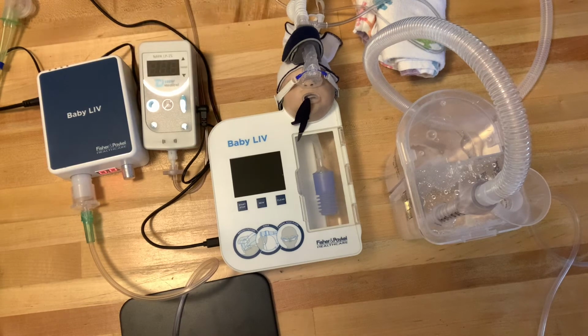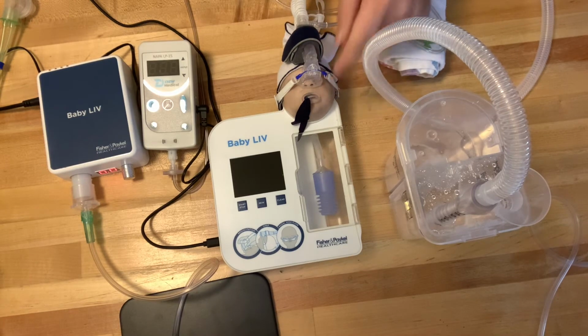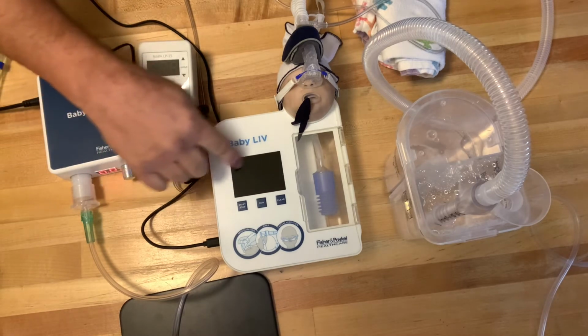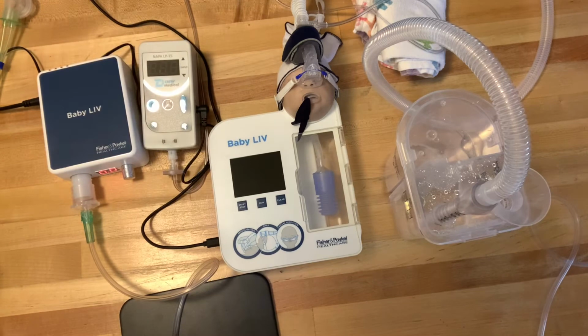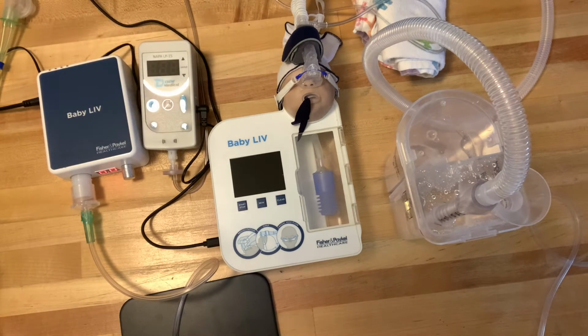Today I have a baby simulator. This baby simulator simulates a 750 gram baby. I have on that simulator the Fisher & Paykel FlexiTrunk system with the mask. I have a pacifier in there to stop mouth leaking. And on the simulator, you're going to see an XY graph screen that's going to let you know what the centimeter water pressure is that the baby will be getting in the lungs.